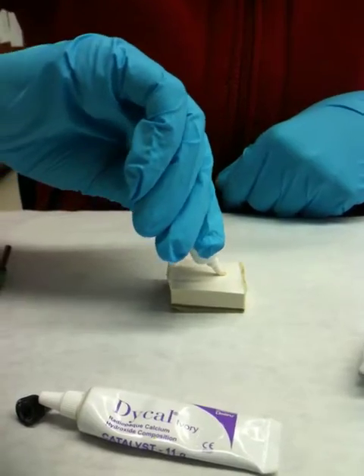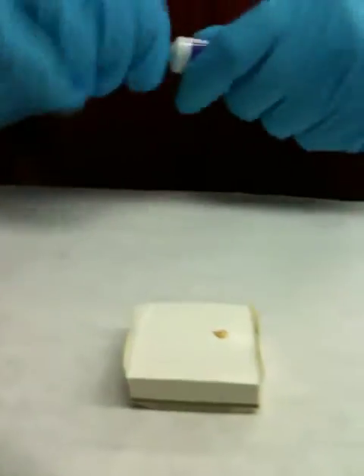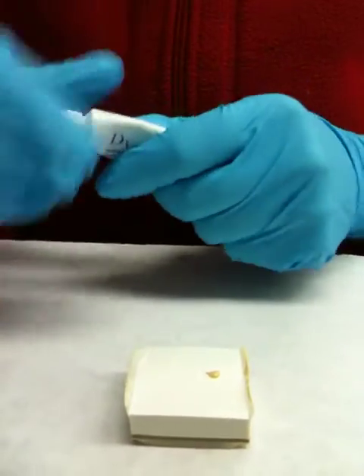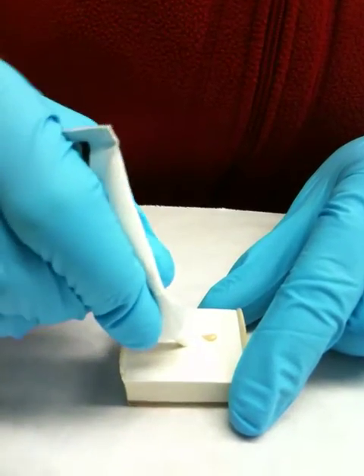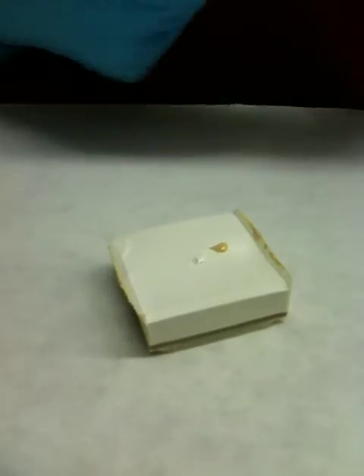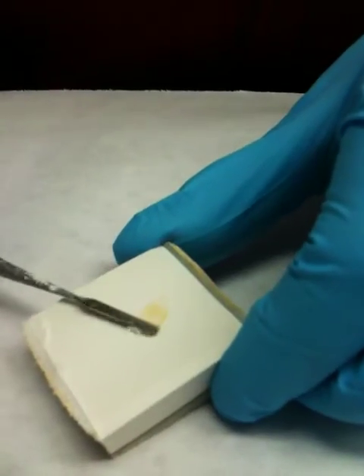Do you want me to do a big amount? No, it's fine. Now I'm putting my catalyst or accelerator — equal amount. Put your cap back on and begin to mix.